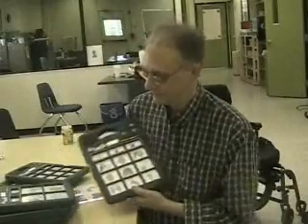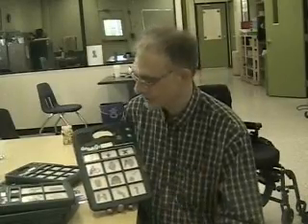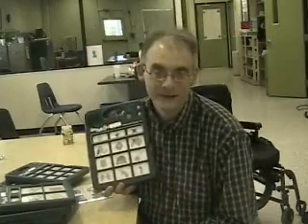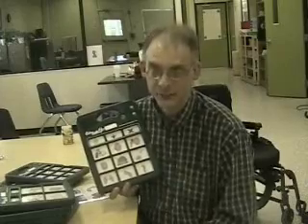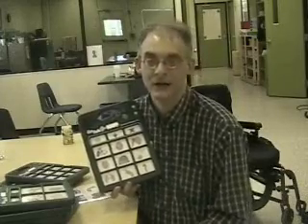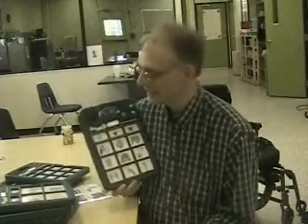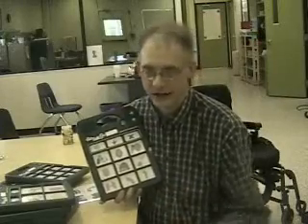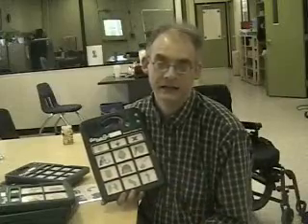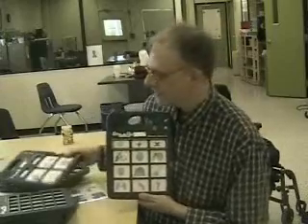And this is one of the downfalls of having communication devices. Even though at between $200 and $300 or $300 and $400, these are considered cheap, they really aren't. $300 is really not that cheap, especially when our county office gives us $100 a year to spend on things like this. So we don't let them just carry them around. But we do use them a lot in the classroom, and I will have them out for the kids to use. And I can actually have several of them.